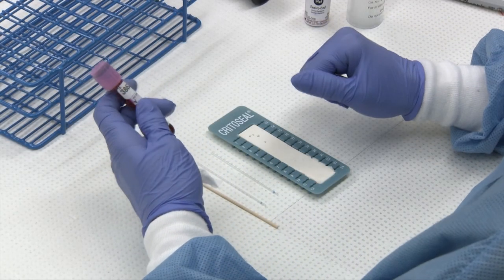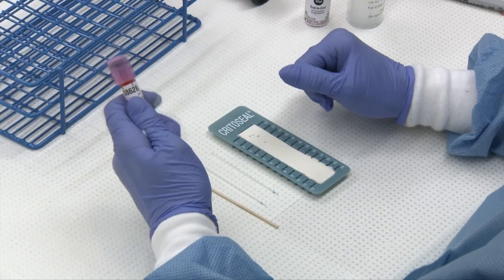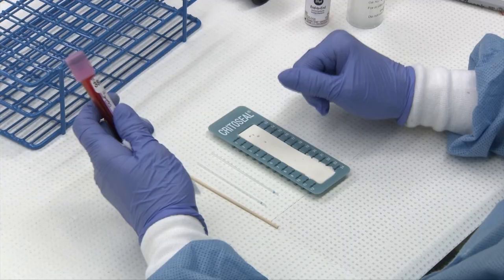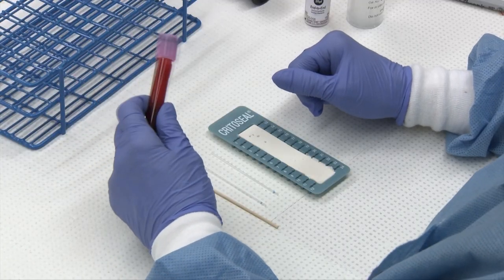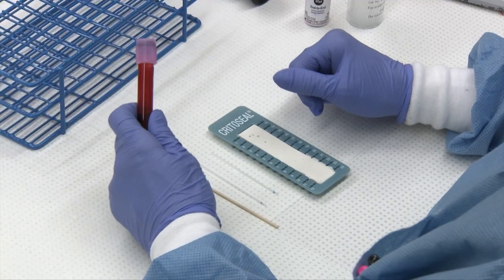I'm going to demonstrate how to perform a packed cell volume, also known as a PCV, and a protein on the plasma by refractometry.